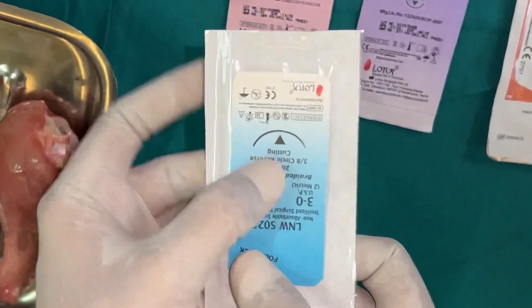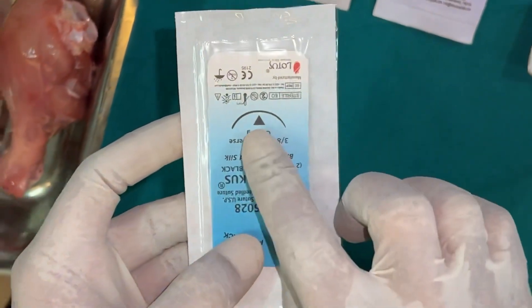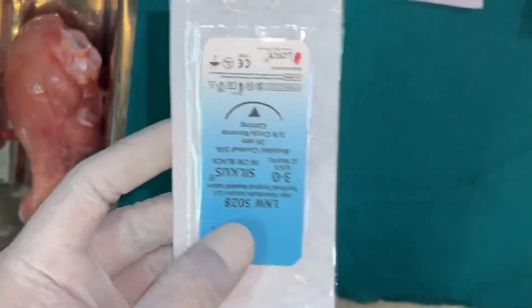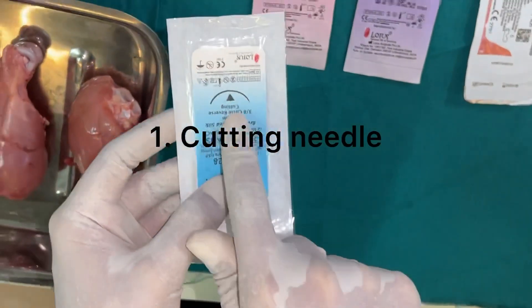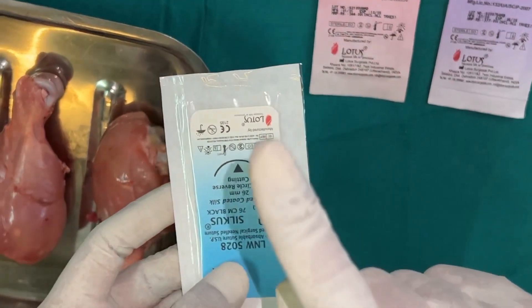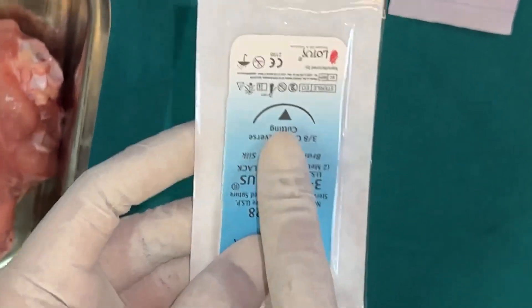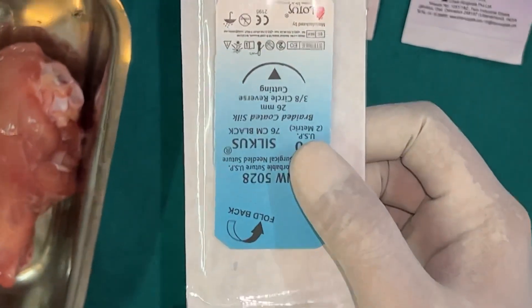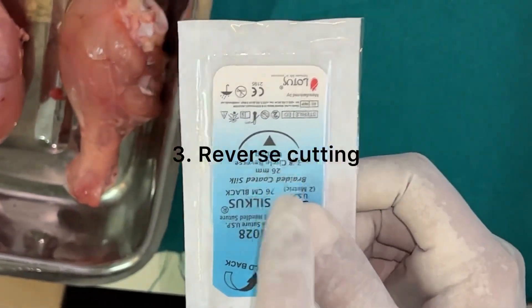The needle should always be of reverse-cutting cross-section. There are three basic needle types used in surgery: a cutting needle, where the cutting edge faces inward on the curve, used for skin suturing; round-bodied needles, used for muscle suturing; and reverse-cutting needles, which are used for mucosal suturing.